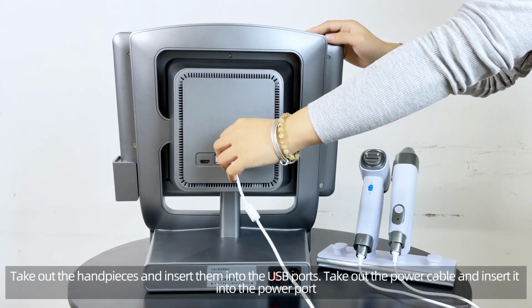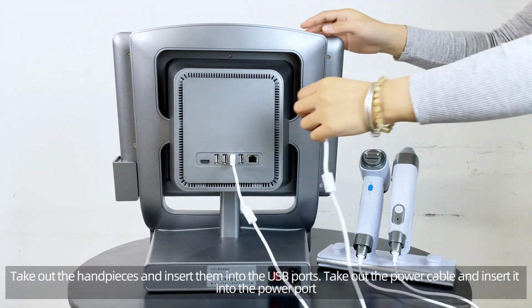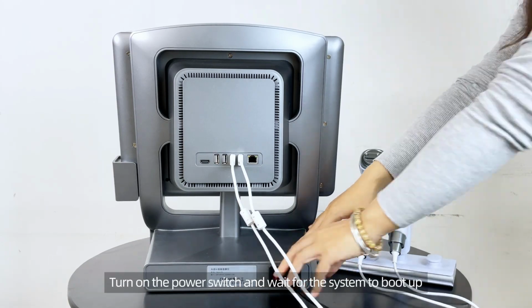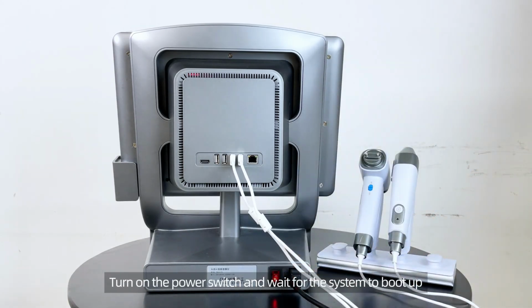Take out the handpieces and insert them into the USB ports. Take out the power cable and insert it into the power port. Turn on the power switch and wait for the system to boot up.